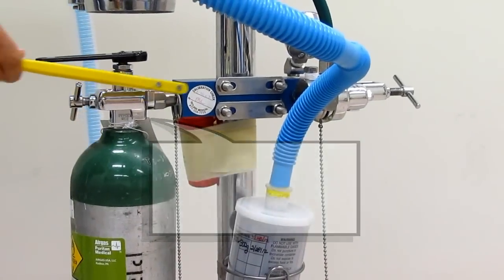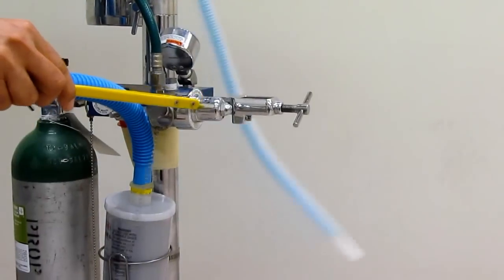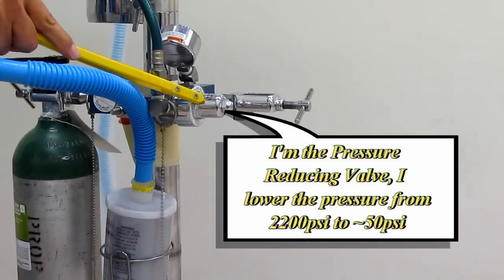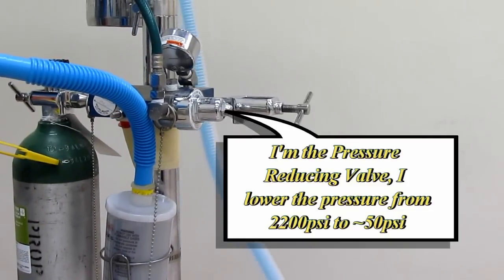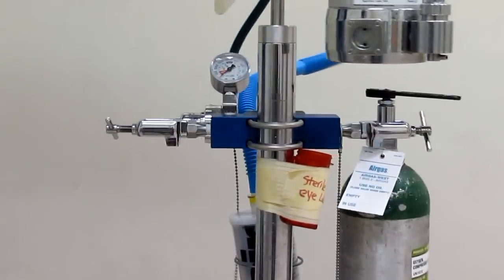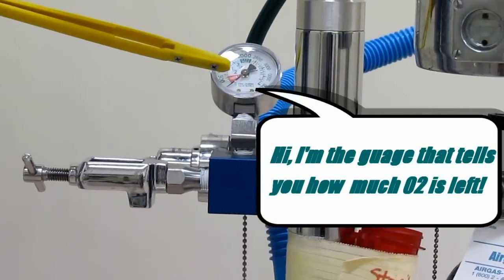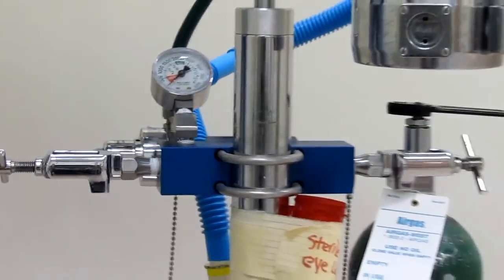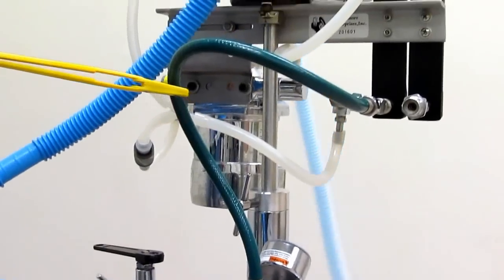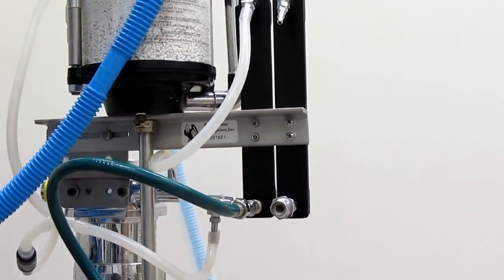From there, oxygen travels into the first component, which is right here. This is the pressure reducing valve. The pressure reducing valve reduces the pressure from a very high pressure of 2200 psi to about 50 psi, which is much more usable. The pressure reducing valve is also associated with the pressure gauge, which tells us how much oxygen is left.